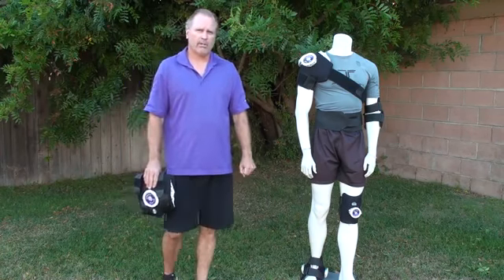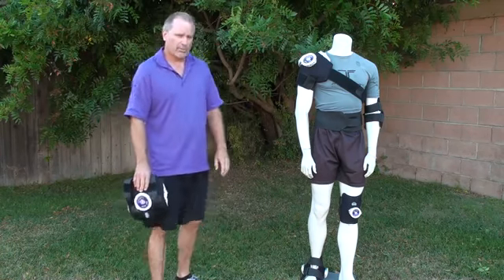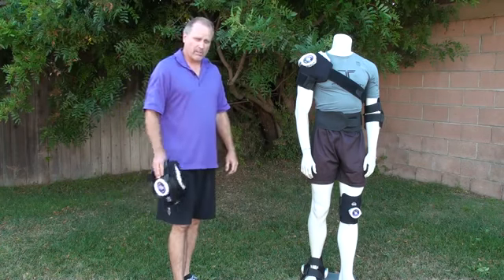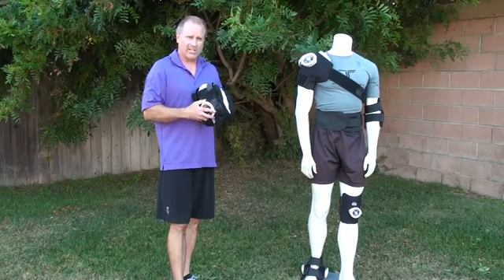Hi, I'm Brad Smith. Thank you for coming to our Easy Ice Therapy website. We're showing you now our instructional video side of our site, and today what we'd like to talk to you about is our double knee ice wrap.